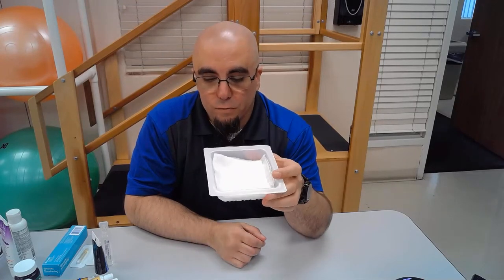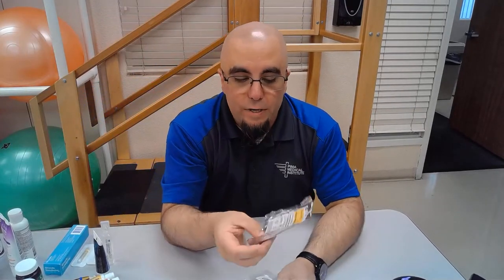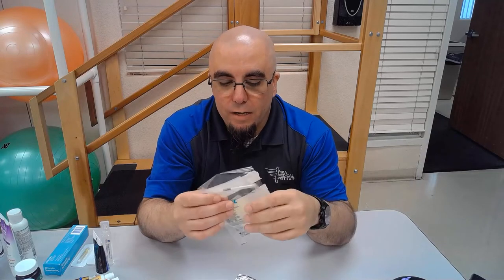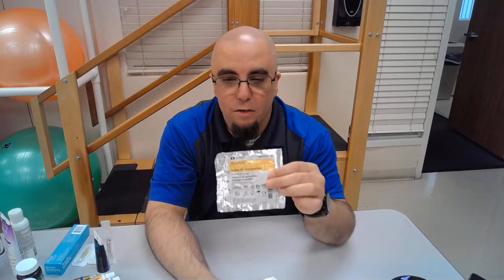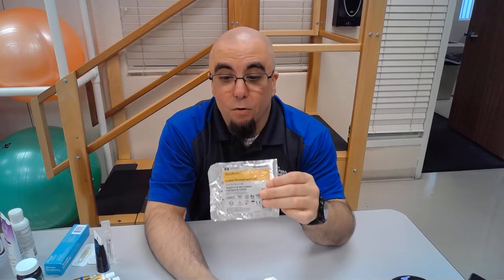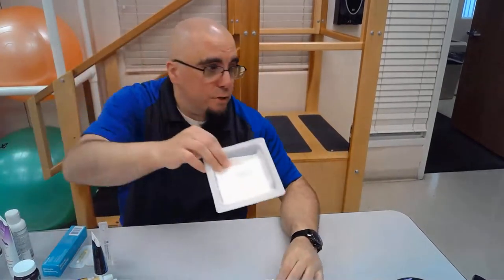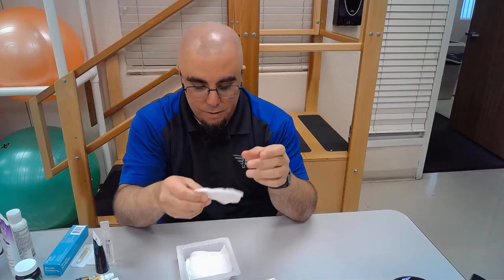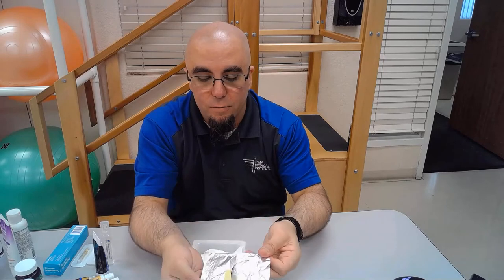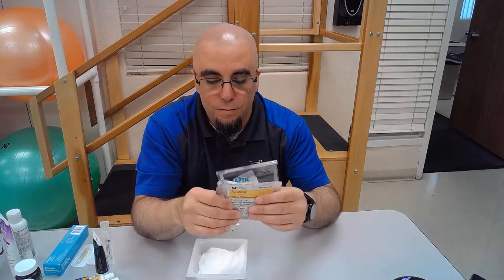Standard gauze is going to be packed in and used as filler for most wounds. On top of standard gauze, there's impregnated gauze — most common are Xeroform or Adaptic. Impregnated gauze is usually impregnated with petroleum jelly, which keeps it from sticking to surfaces like exposed bone or tendon. Normal traditional gauze with its fibers tends to stick to those materials, so impregnated gauze is what we use.